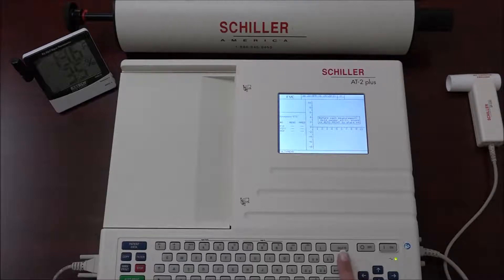The calibration screen is displayed by pressing Alt-8. This screen will indicate the last calibration date, the calculated BTPS — which is the value that compensates for the difference in inhaled and exhaled humidity — the calibration factor, which is the calculated value between the measured and effective calibration air volume, and the ambient temperature, which must be derived from a digital thermometer and not the room thermostat.